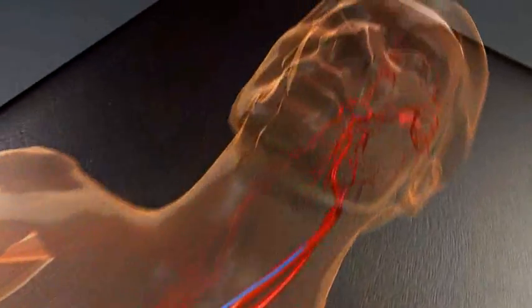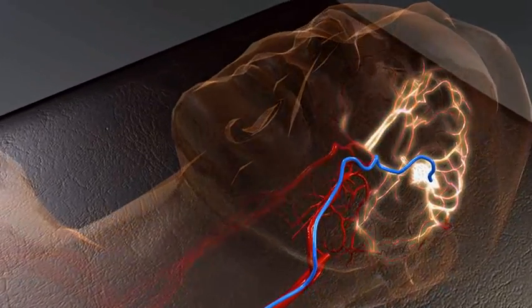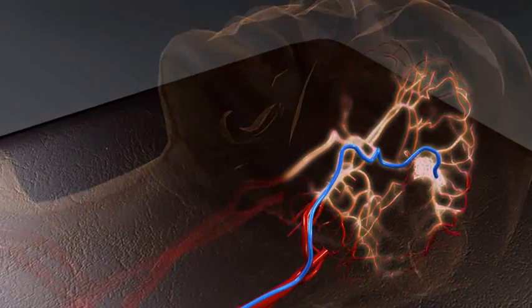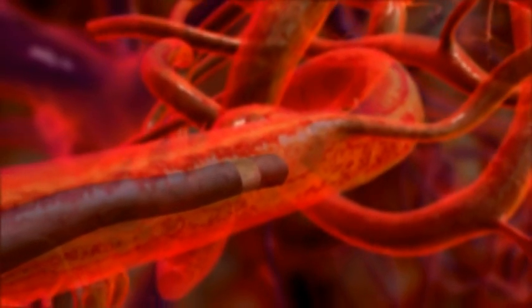Ensure optimal microcatheter placement with the injection of contrast agent per institutional procedure. Based on clinical practice, it is helpful to establish a working projection that visualizes the distal few centimeters of the microcatheter.